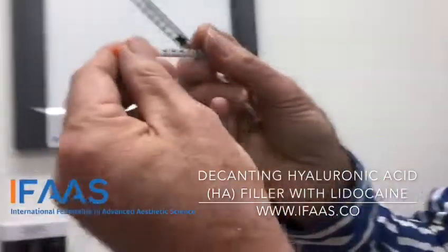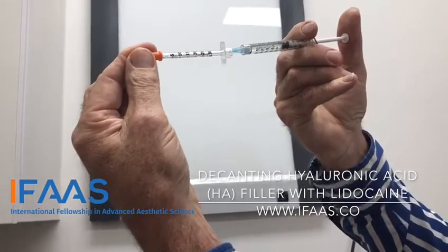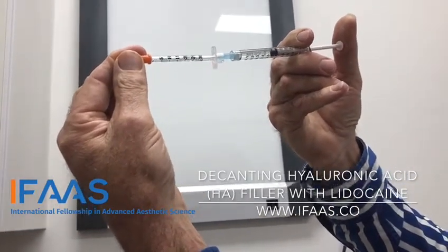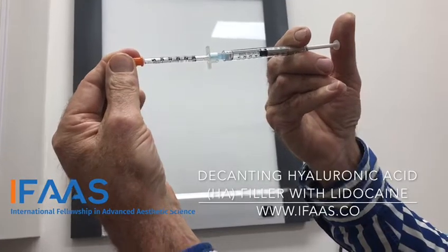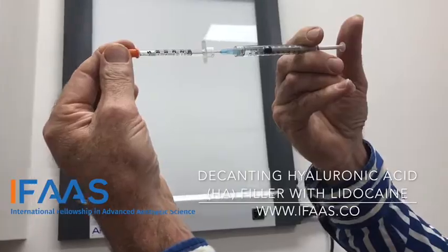When you're filling it, hold it up to the light and put it about halfway down — say to about the 20 mark — and just watch it coming both ways. You want to put in about 0.3ml, then pull this back a little bit to get rid of the air bubble at this end.